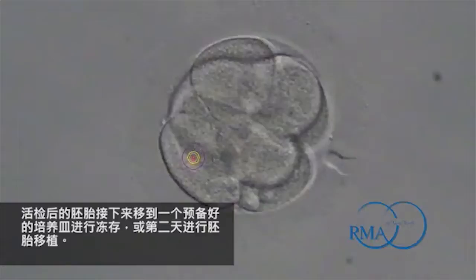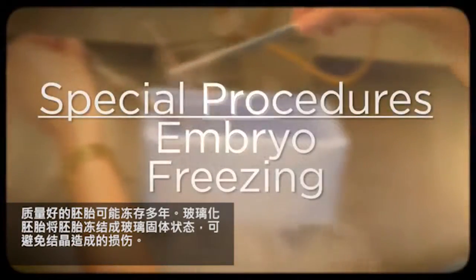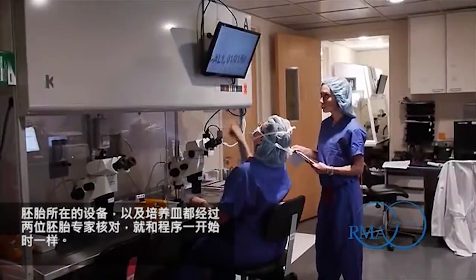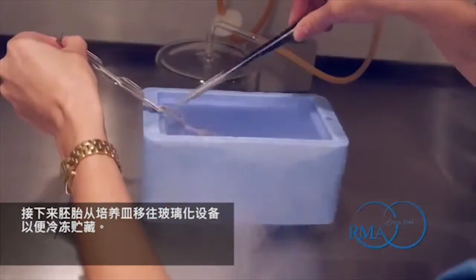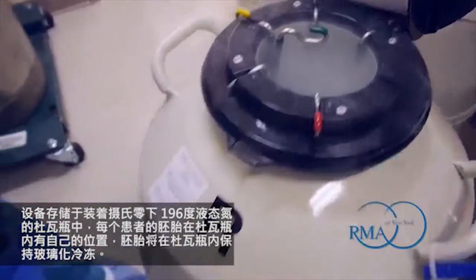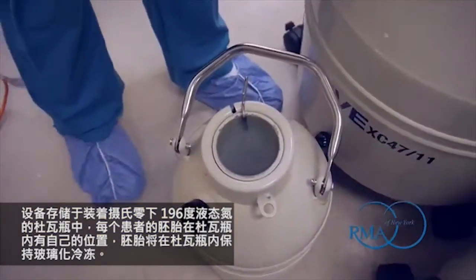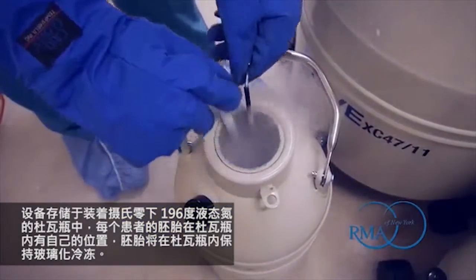The biopsied embryos are then moved to a dish in preparation for cryopreservation or an embryo transfer the following day. Good quality embryos may be frozen and stored for years. We vitrify embryos, which freezes the embryos in a glass solid state to avoid damage from ice crystallization. The devices in which the embryos are vitrified, as well as the culture dish, are both witnessed by two embryologists as the first step in this procedure. The embryos are then moved from the culture dish onto vitrification devices for frozen storage. The device is stored in liquid nitrogen held in dewers at about negative 196 degrees Celsius, and each patient's embryos have their own location within a dewar where the embryos will remain vitrified.